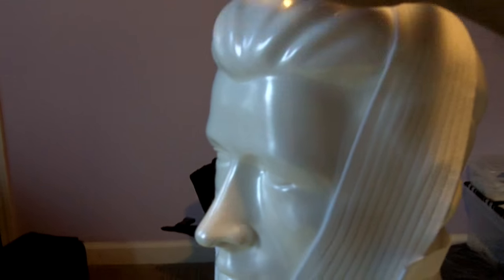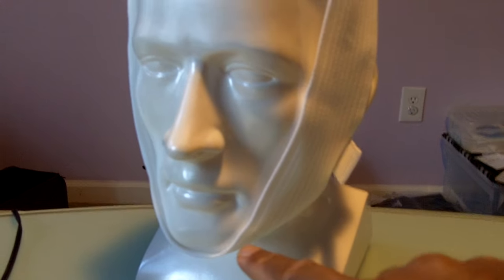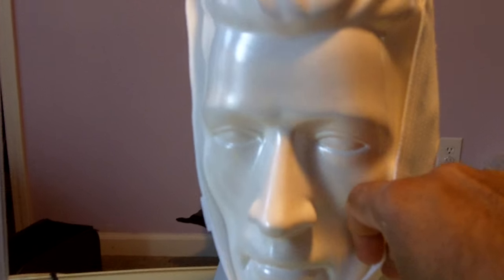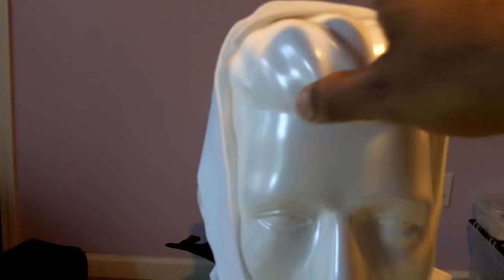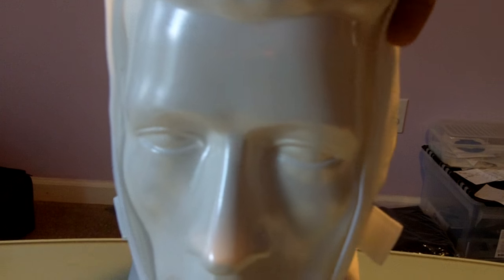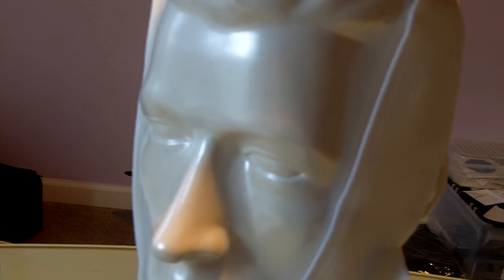Welcome to CPAP Helpdesk.com. This video review is for the CPAP Chin Strap made by Respironics and this is called the Deluxe Chin Strap.